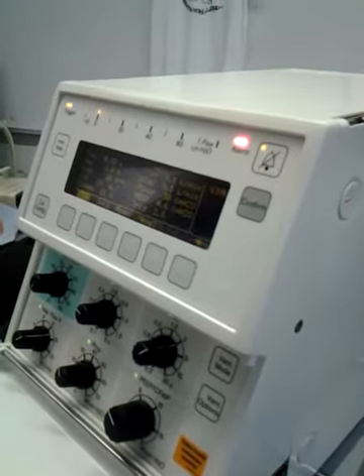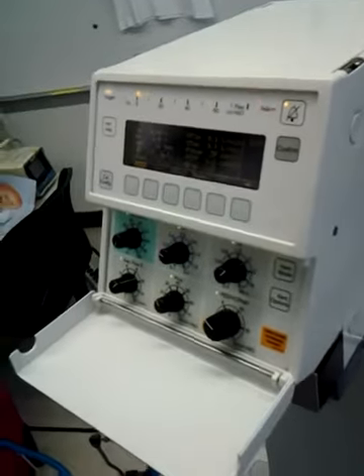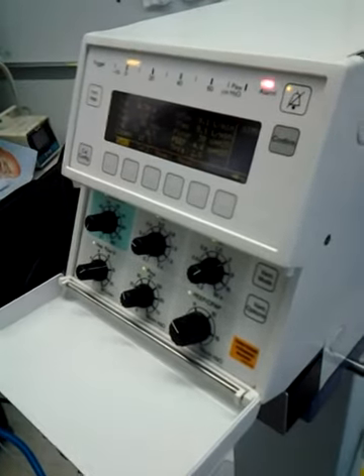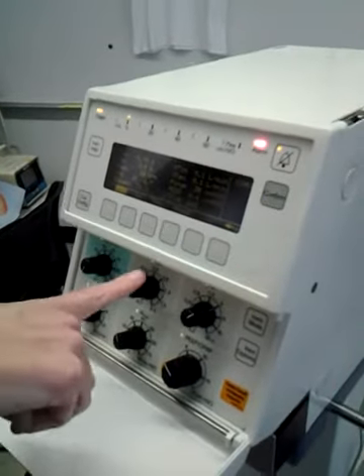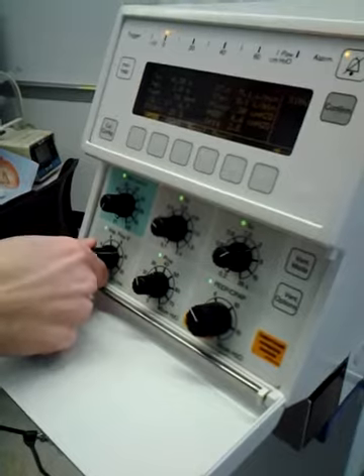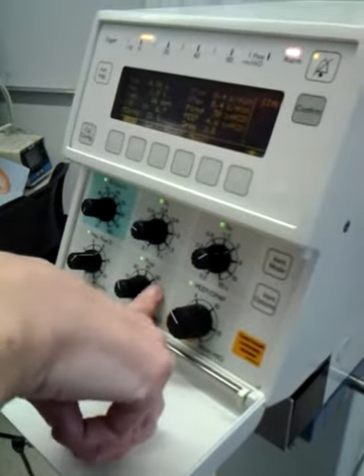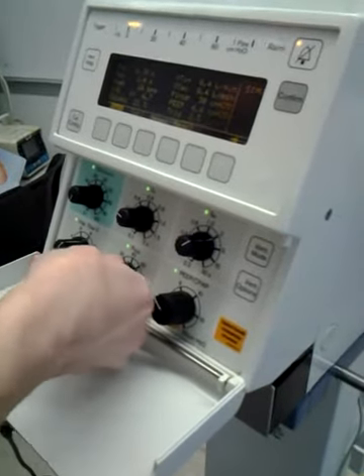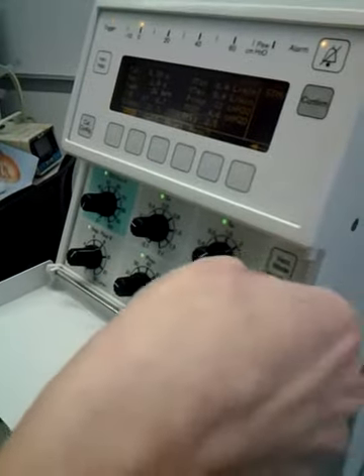And then here's your I to E is 1 to 6.7. Okay. And your time in's 0.3, your time out's 2. So this is your FiO2, your I time, flow, your E time, your flow, which you said is going to be between 8, 9, 10, something like that. Inspiratory is going to be no more than 30. The CPAP's always less too. It's like 2 to 5, right? Well, 5 is usually your physiological normal.